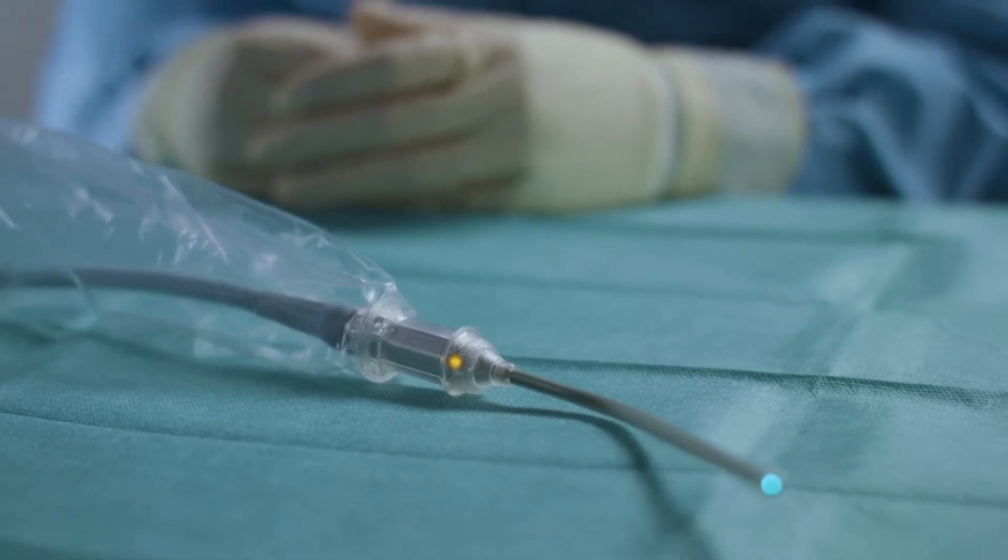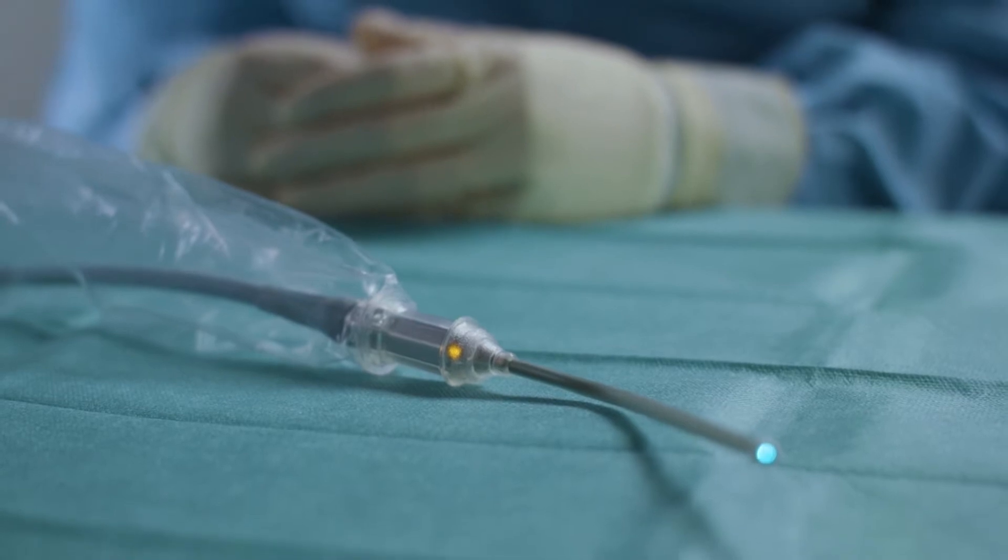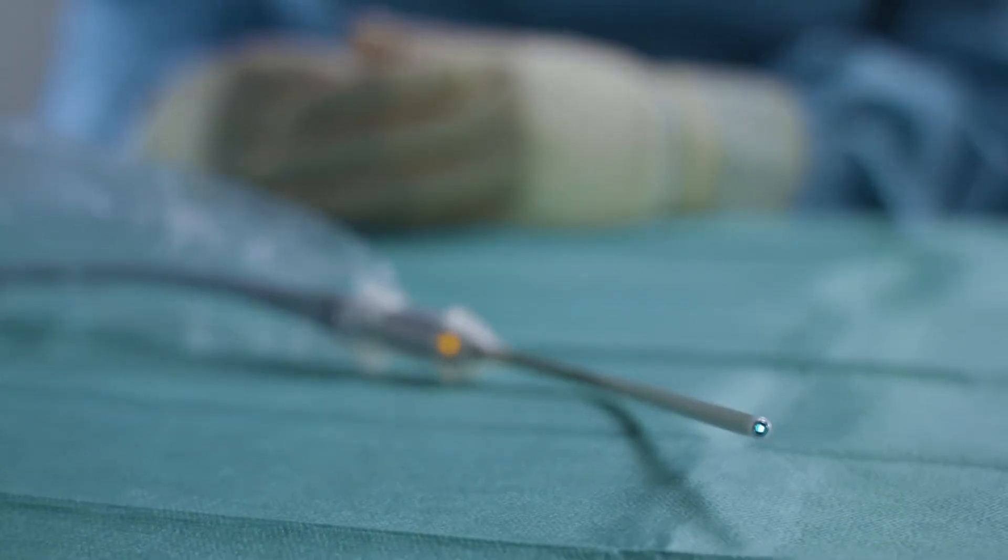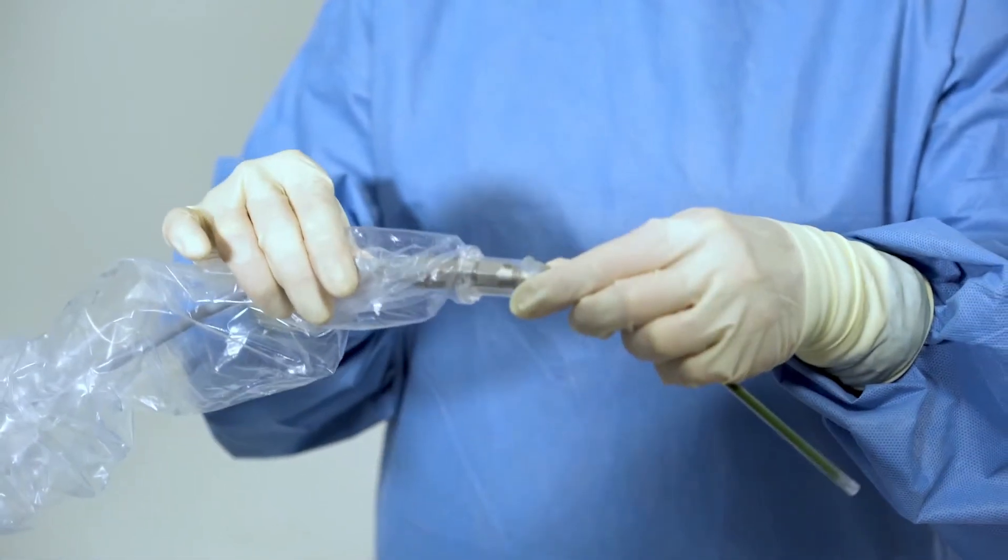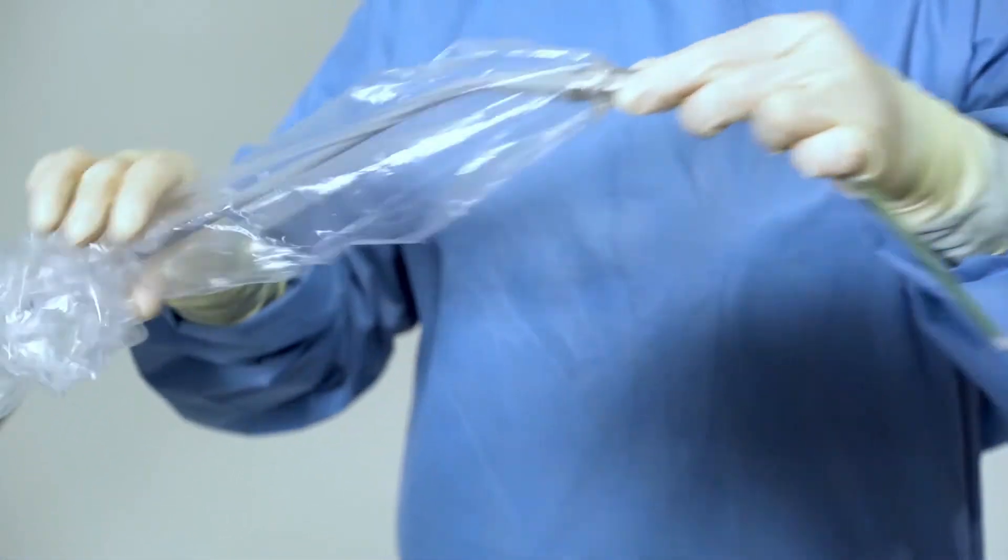Before the focus point of the Zeiss sterile sheath for Zeiss Convivo can be found, make sure that the probe is ready to scan and that the sterile sheath is correctly applied.